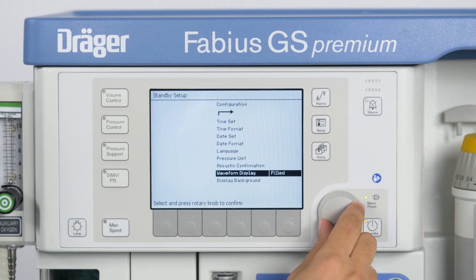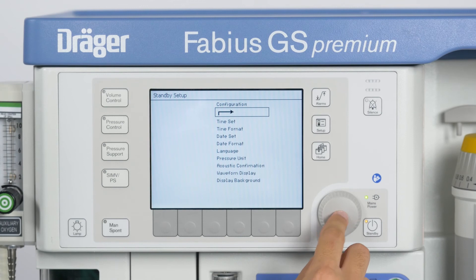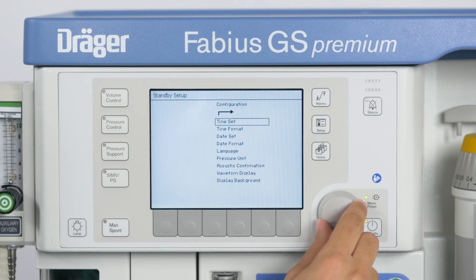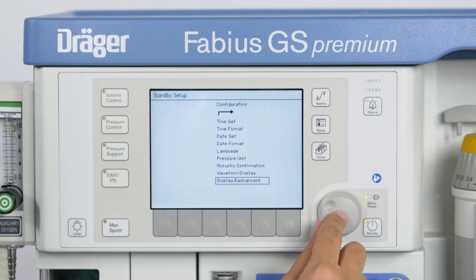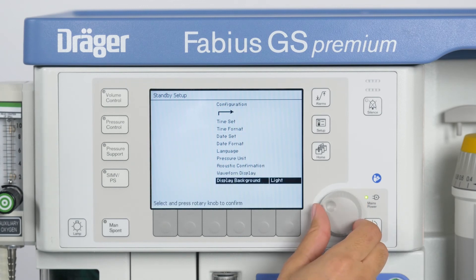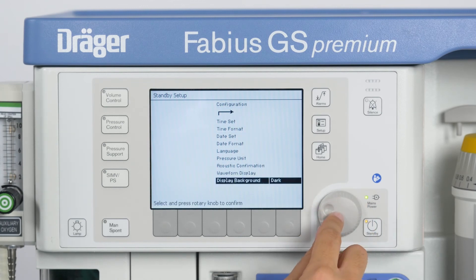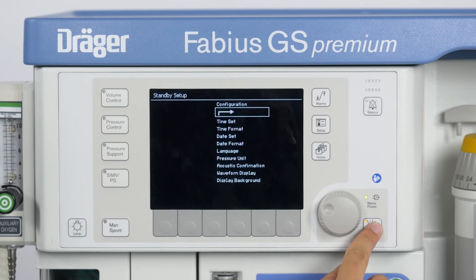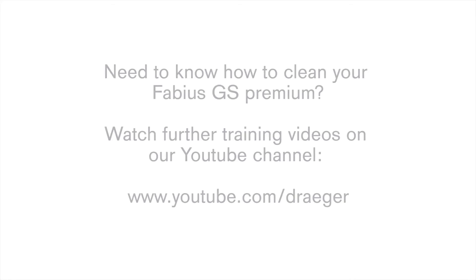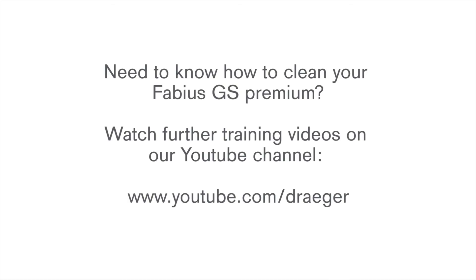Under Waveform Display, you can choose between a normal curve, which is a line, and a filled curve. For minimally invasive surgery, when the OR lights are dimmed, you can set your display to dark mode under the menu Display Background.